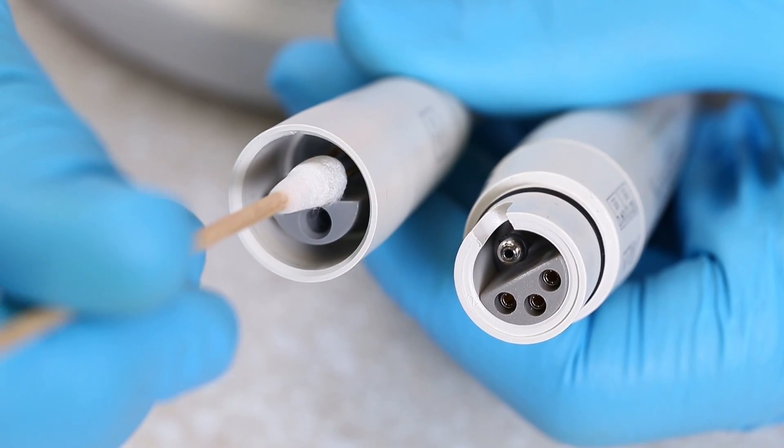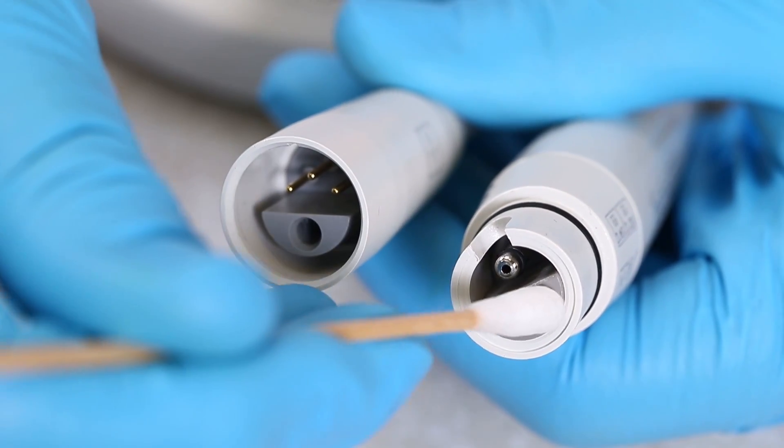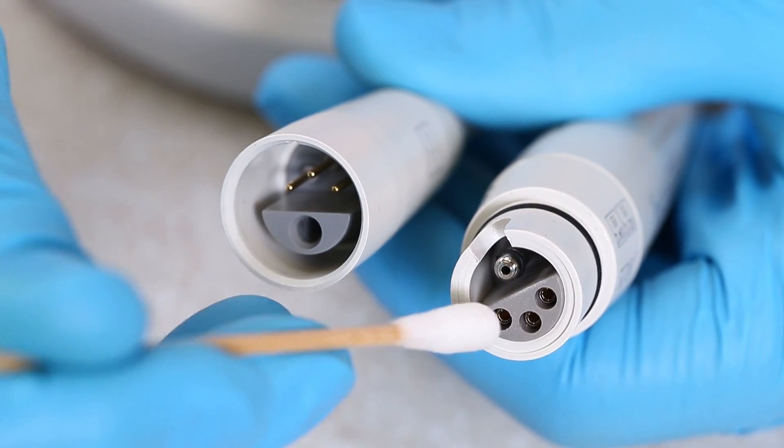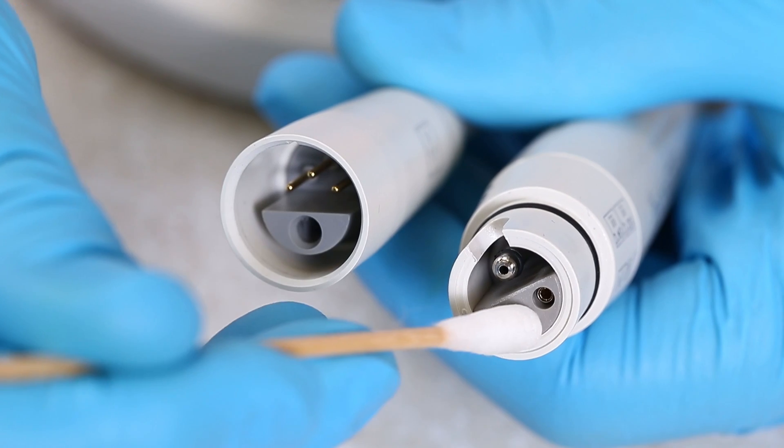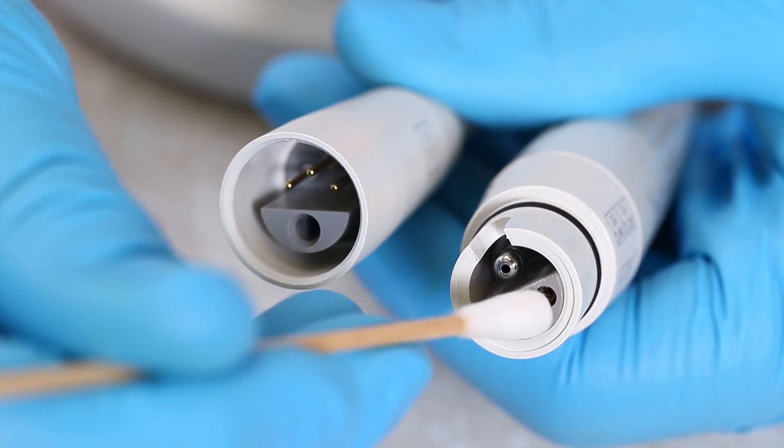Another possible cause for poor or no vibration is faulty handpiece connector contacts. Use a Q-tip to clean the connection between the cord and handpiece contacts.